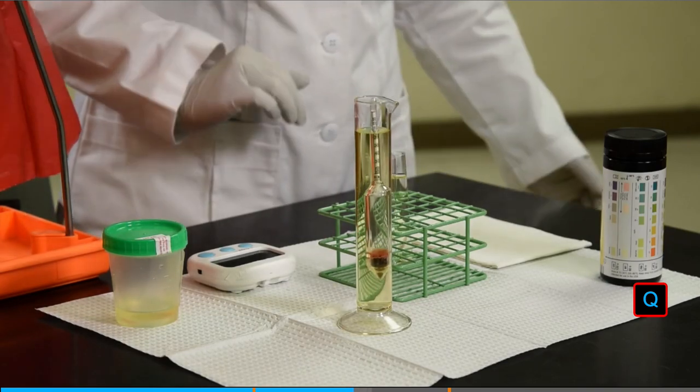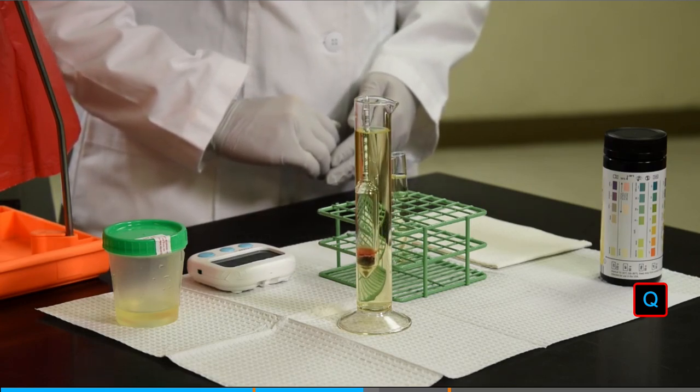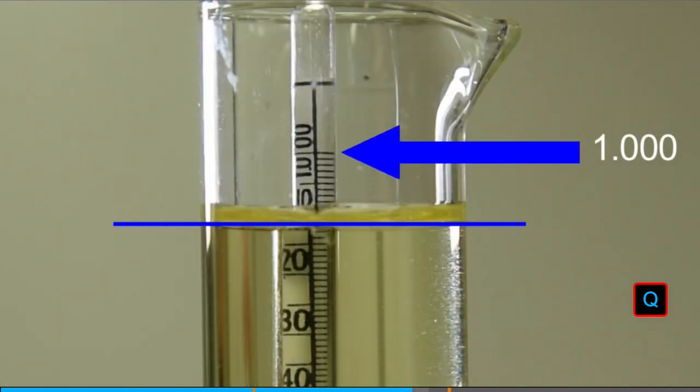When using a urinometer, gently place the meter with the weight into a cylinder that is about 2/3 filled with urine. The meter should float freely. The top of the meter reads as 1, with 3 zeros to the right of the decimal. The values to the right of the decimal point are read by drawing a line beneath the meniscus of the fluid and reading the meter like a ruler. For example, the specific gravity measured here is 1.013.